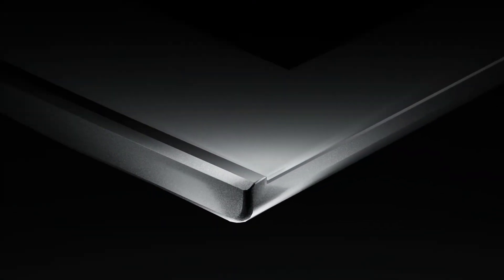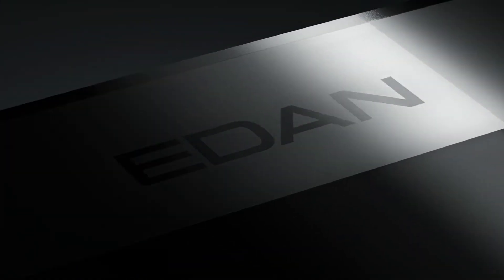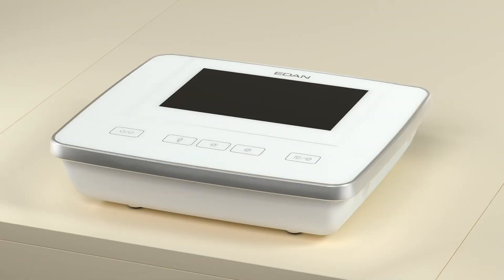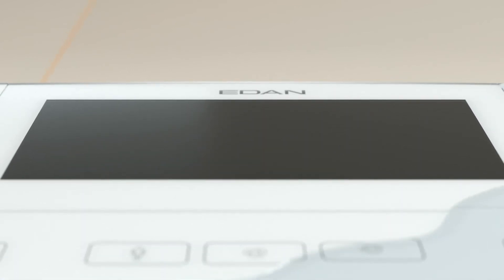We made the user area of the 1202 the primary focus by designing a single glass layer surrounded by metal trim. This creates a distinctive impression and also creates an area for the adjustable display to emerge from. The glass layer also contains the touch-sensitive keys for the user interface, and being a sealed surface, makes it easy to clean.